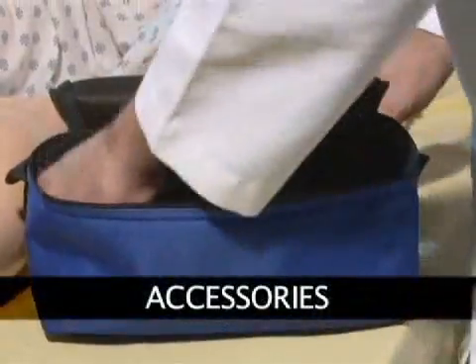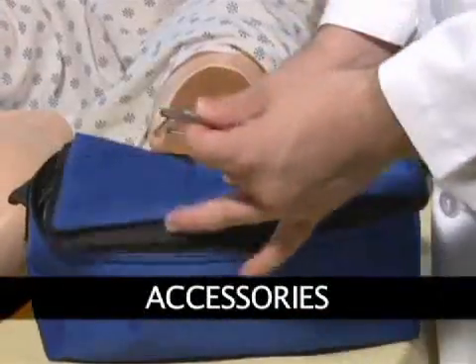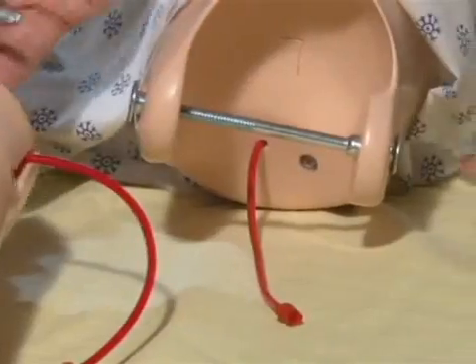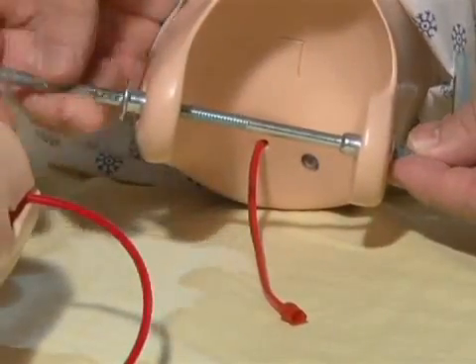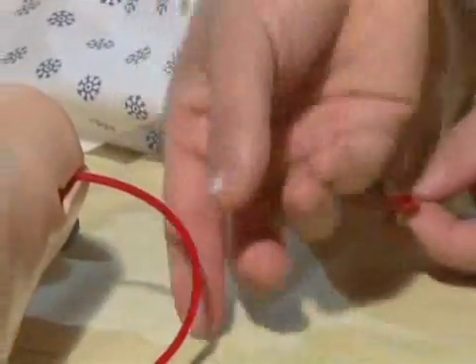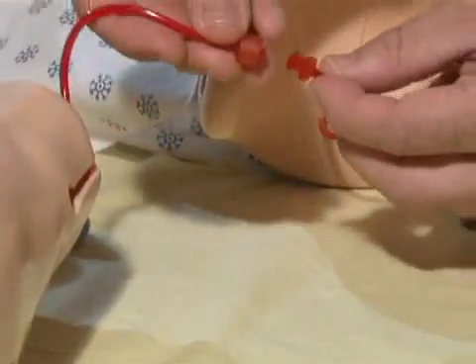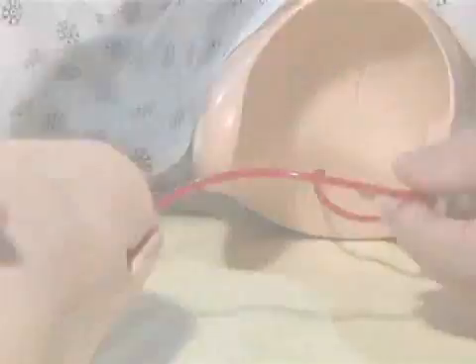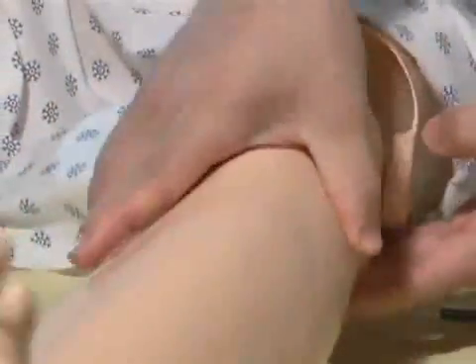Inside Suzy's carrying case, you will find a blue bag containing several accessories. Remove the Allen wrenches from the bag and detach bolts from the knees. Connect the matching red tubes protruding from the calf and upper leg. Once the tubes are connected, attach the lower legs as shown.